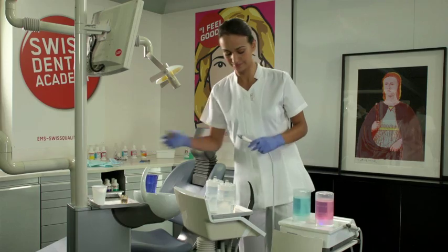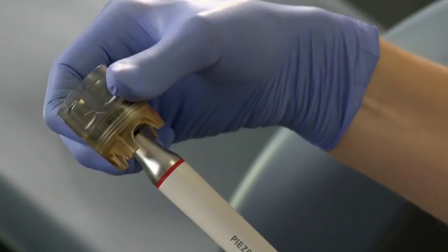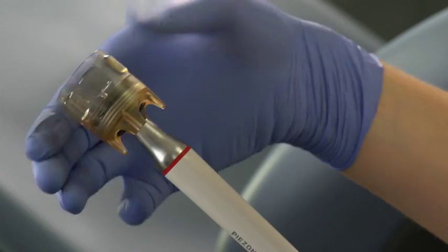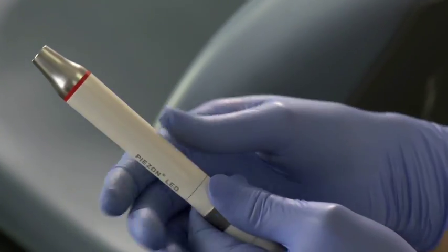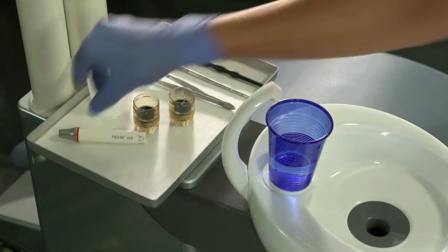Start by removing the instrument, then the handpiece, ready to be sent for sterilization.